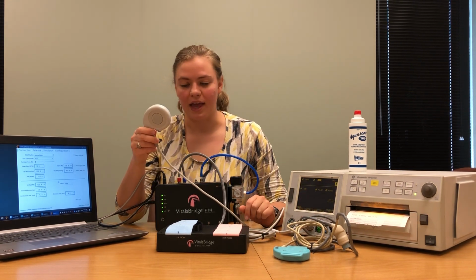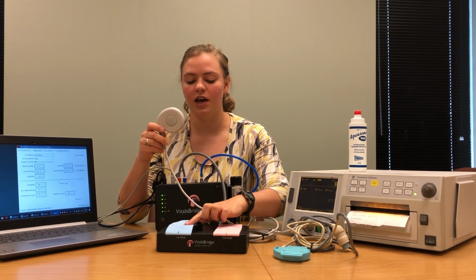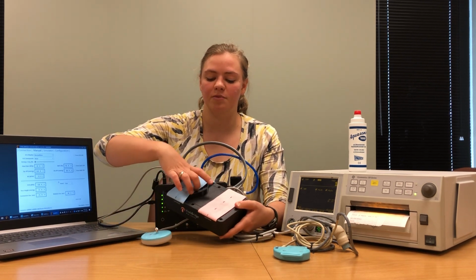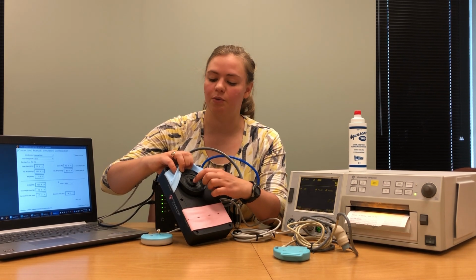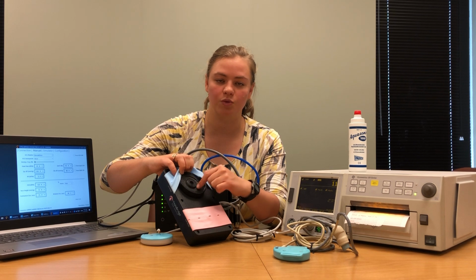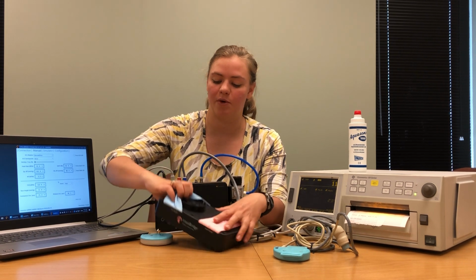Next, take the rubber end and the probe end and put the rubber flush against the adapter box underneath the blue ribbon cable. If you pull aside the blue ribbon cable, you'll see an apparatus here. If your probe did have the button, it would go in this hole. Since mine doesn't have a button, I'm just going to center the rubber portion of my probe on the protruding portion of this apparatus.